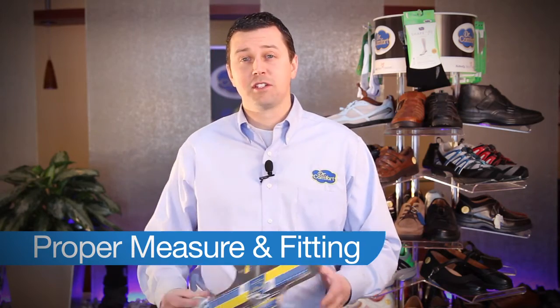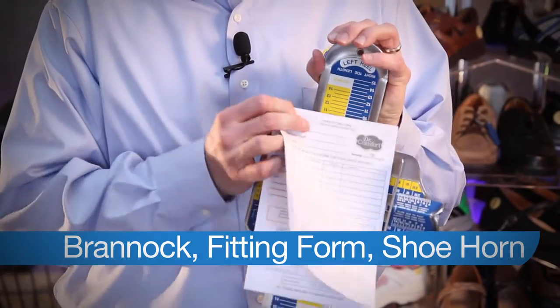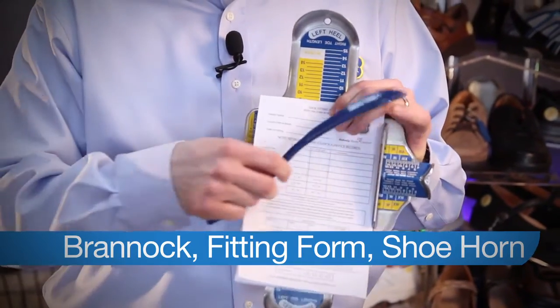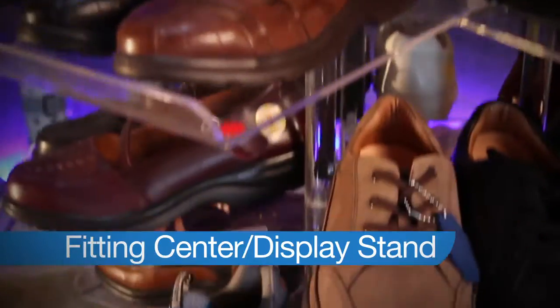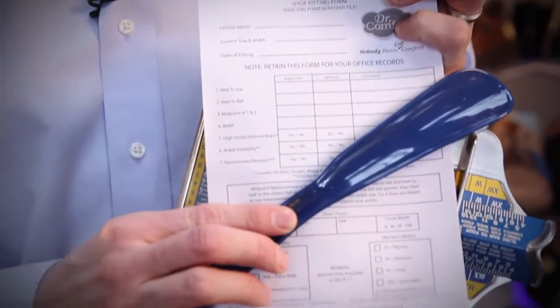The items that I'll be using to assist with measuring and fitting will be the Brannock device, a shoe fitting form to record your results, a shoe horn, a display center, as well as a fitting stool. All these tools will assist you in making sure that you are fitting the patients properly, and the goal of this video is to ensure the success with your footwear program with measuring and fitting.